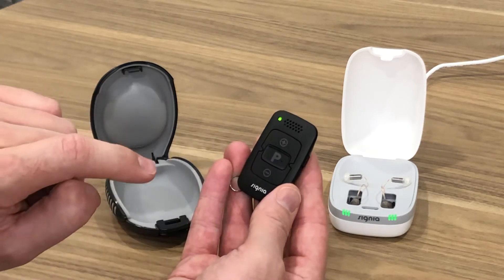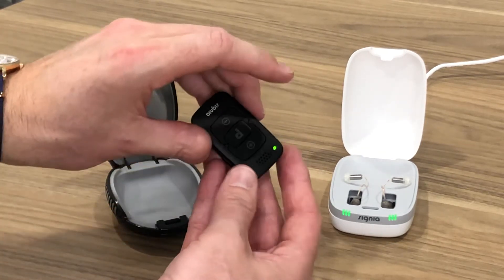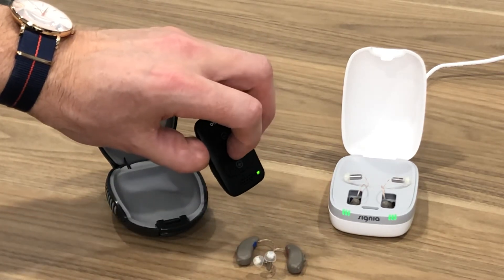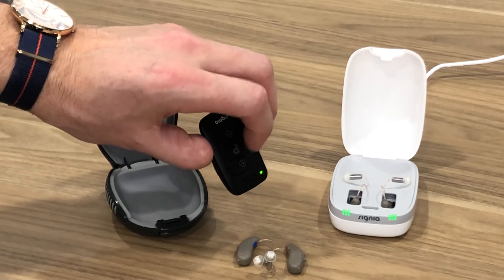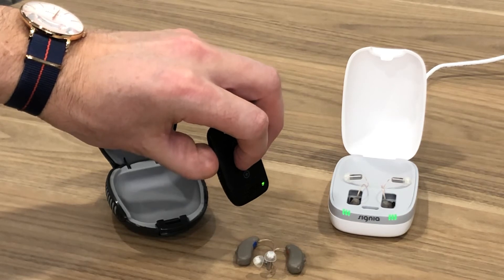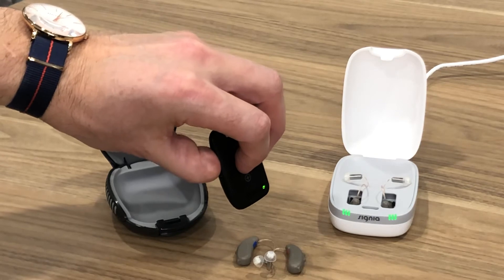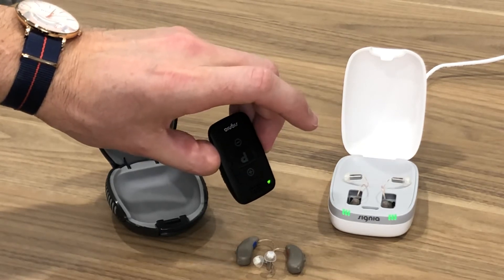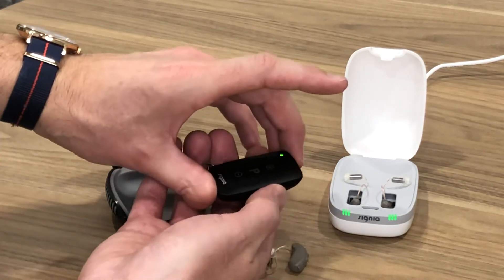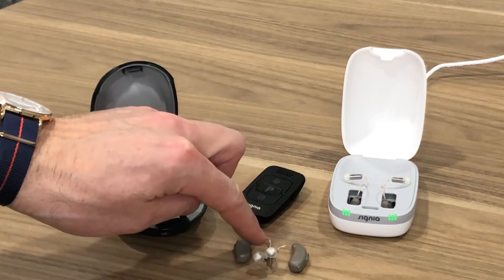After a few seconds, let go. Now carefully, without pressing any buttons, bring the remote close to the hearing aids. Press the P button and pin it down for about five seconds — one, two, three, four, five — then let go of it and carefully turn the remote off. Now you have paired the remote to the hearing aids.